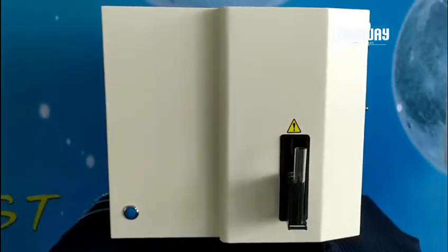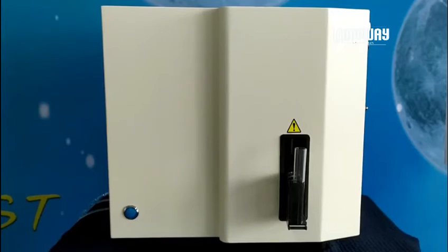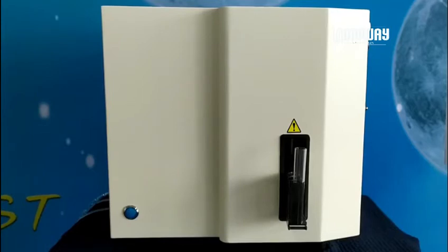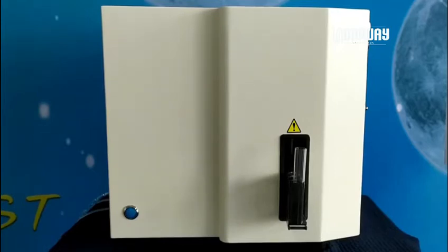Hi, this is a presentation of BioWay's brand new urine sediment analyzer BW2000.